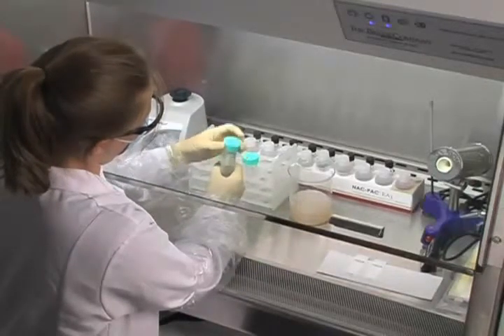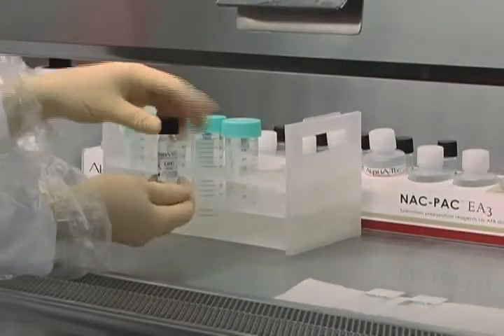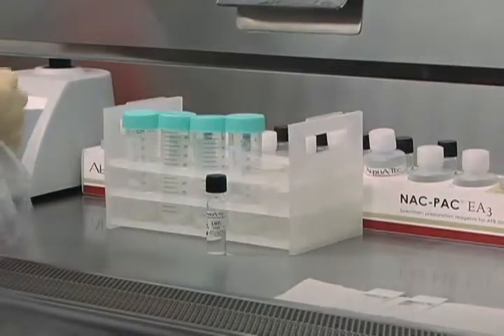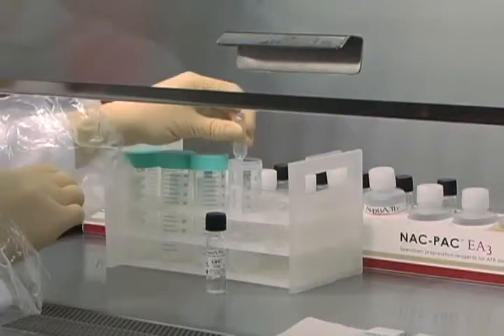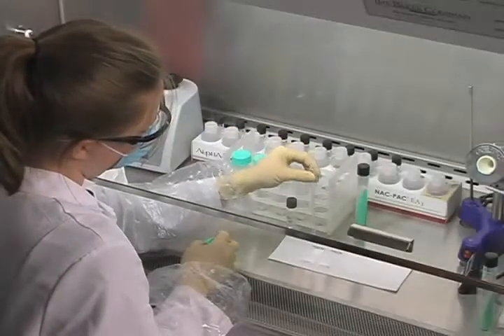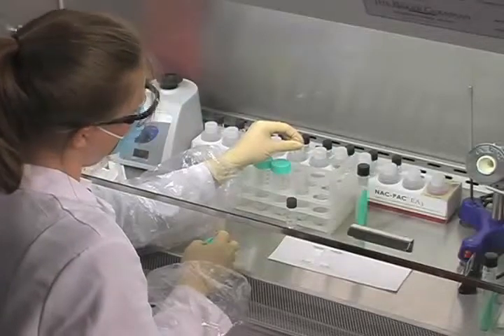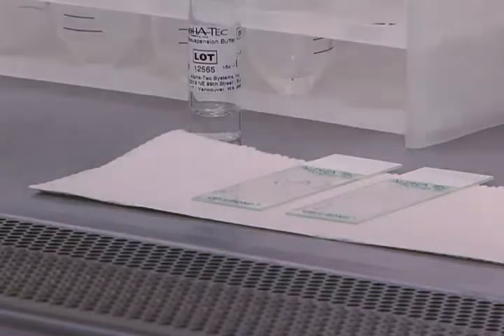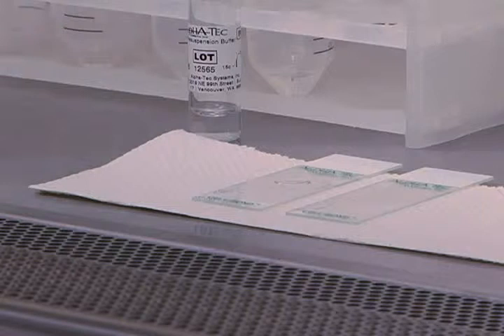Wipe the lip of the tube with an appropriate disinfectant to prevent contamination. When decanting, be careful not to loosen the pellet. Using a sterile, disposable pipette, resuspend the pellet with 0.5 mL of pellet resuspension buffer and mix by gentle aspiration and discharge. Draw up a small amount of the mixed pellet into the pipette and place a drop onto a pair of clean, cell-bond adhesive slides to prepare for AFB staining. By adding only 0.5 mL of pellet resuspension buffer, the sensitivity of the AFB smear will be increased. The adhesive slide is important to hold the smear material onto the slide, and since bovine albumin fraction 5 reagent is not used in this procedure, the adhesive will also keep it from peeling off during staining.